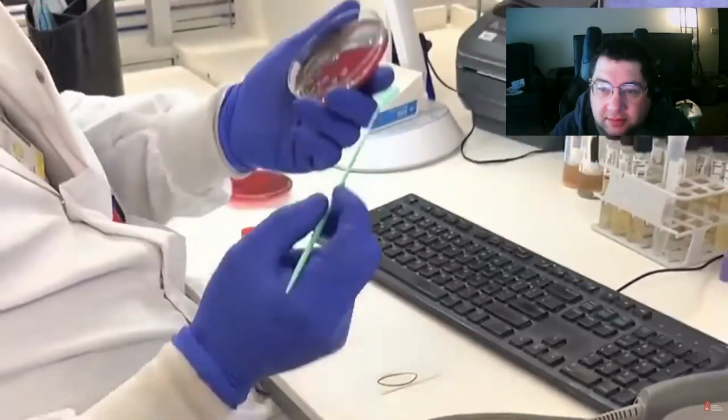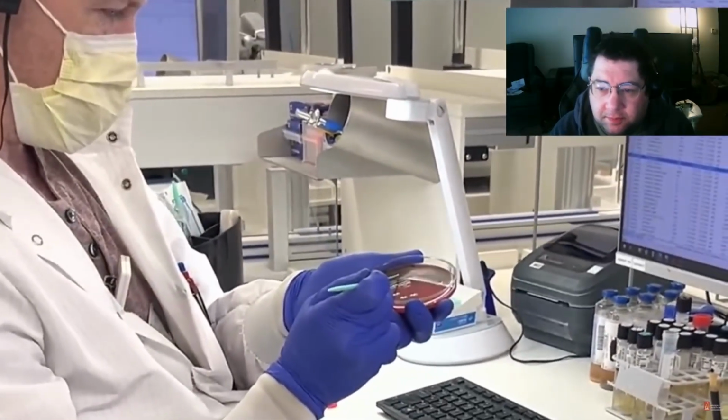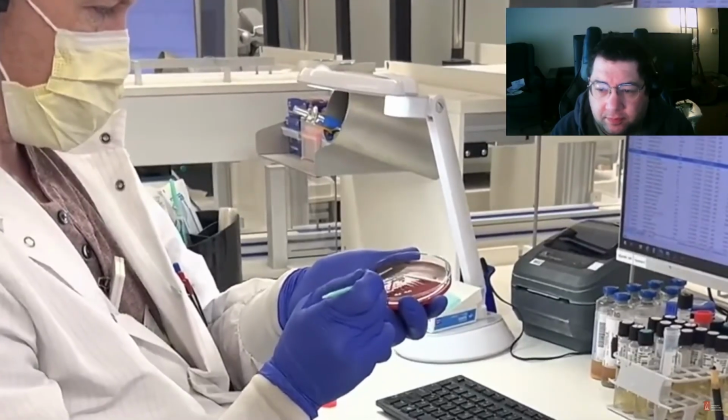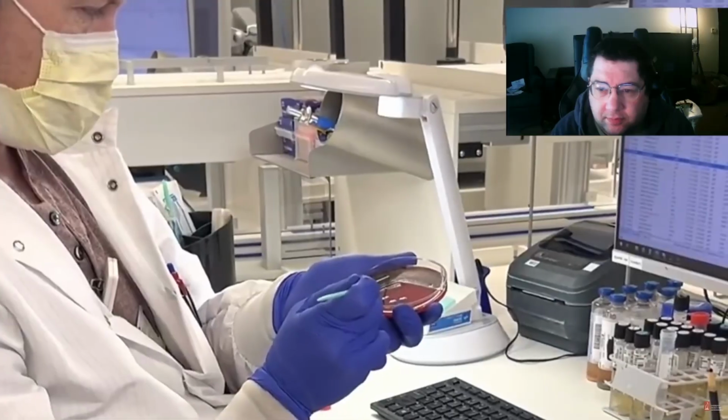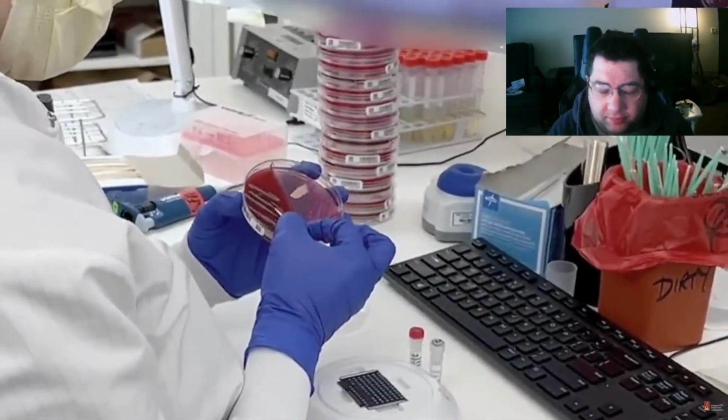Technologists at worker benches will perform workup of suspicious colonies. For bacterial identification, the isolated colony is transferred to a target plate and identified by mass spectrometry. The mass spec process develops a protein profile.